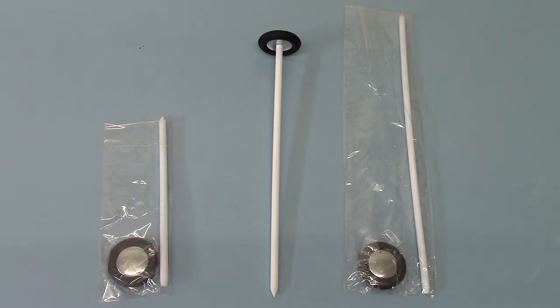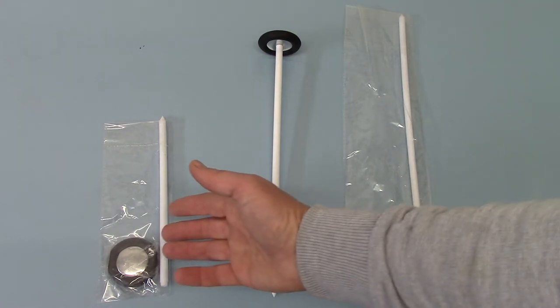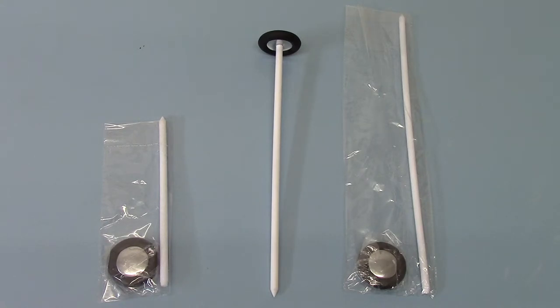We've always marketed these towards the pediatric market, but the beauty of those is they fit into your pocket very easily and can also go into GP bags without taking up too much space. It's less liable to bending and breaking with a shorter handle.